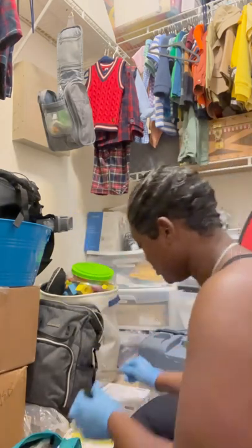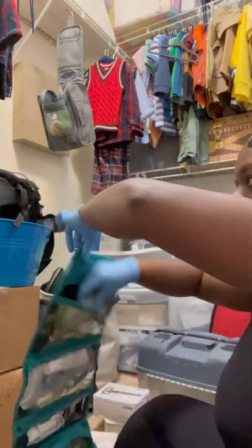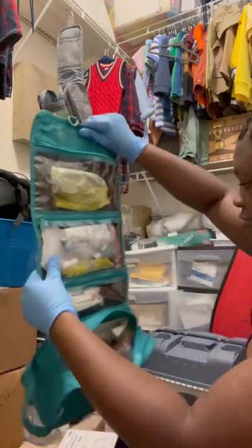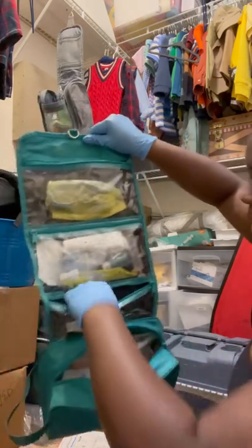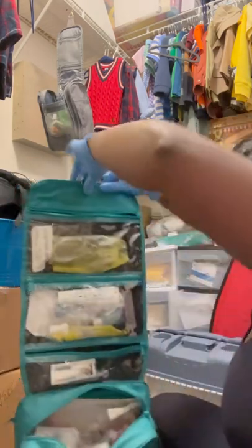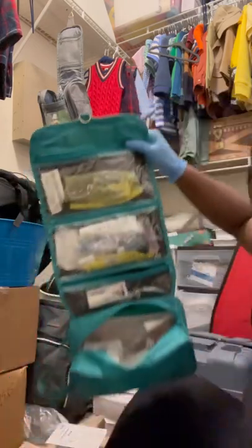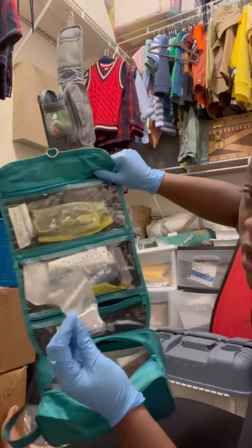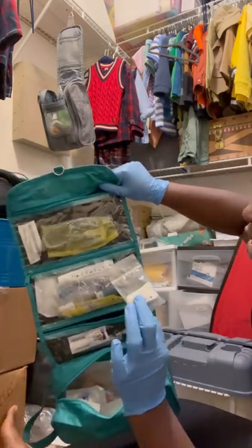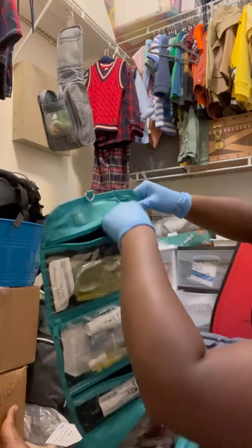I have this prepared and that goes at the top part right here. I need some lubricants — lubricant is right here. I'm going to move one of them up here. You want to make sure you have that lubricant. And where is the key? I don't know what other families call it, but we call it a key. Braylon's trach is stuck on his circuit and we cannot disconnect it — you use this little white key to disconnect it. So I'm putting that in there as well.